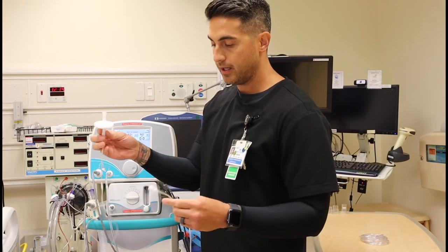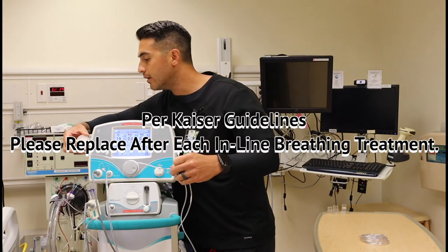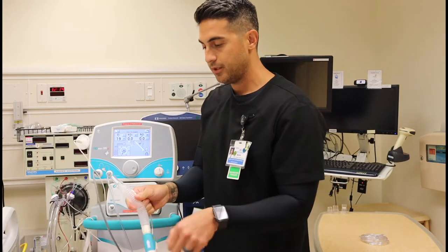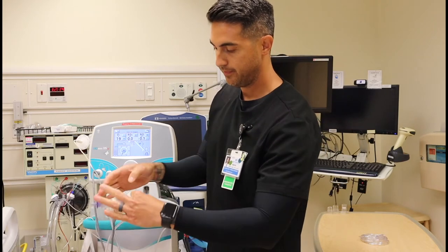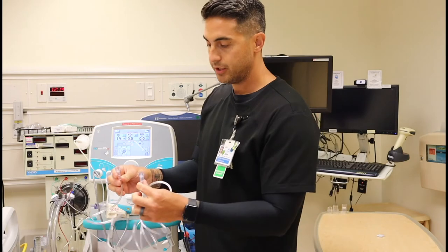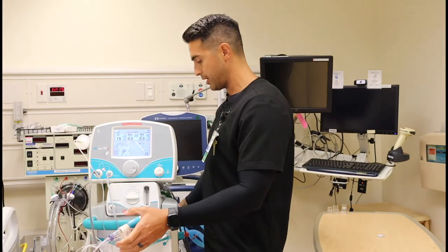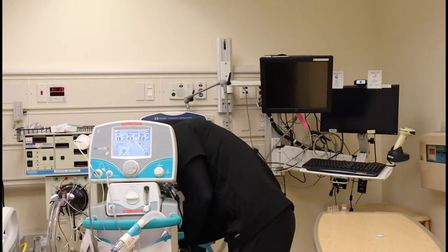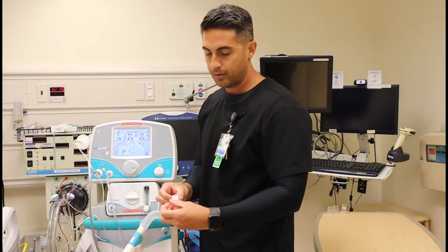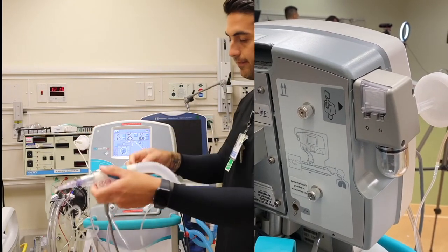Now add the sample line and filter disk, which screw in on the right side of your machine and onto your injector module at the sample line adapter. Your oxygen tubing goes on the oxygen adapter end — the other side connects to a high pressure oxygen hookup, with an E-cylinder tank on the back. Last, add the water trap filter. Here is our pre-use assembly.